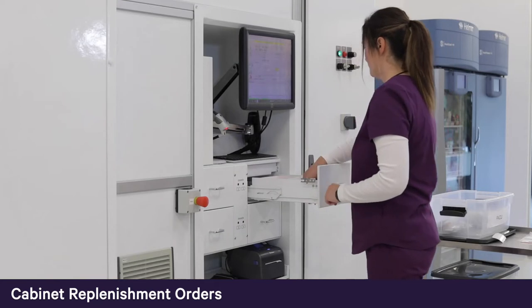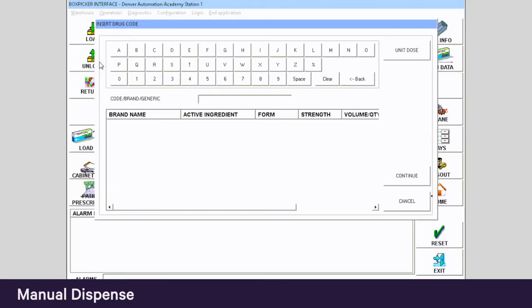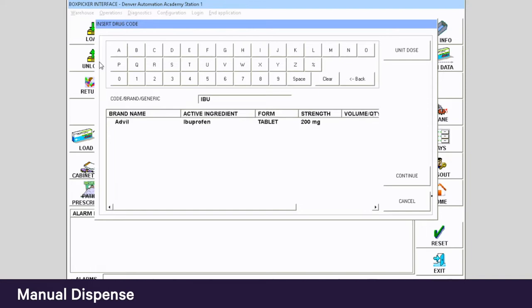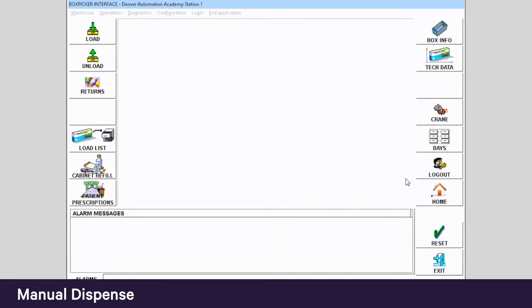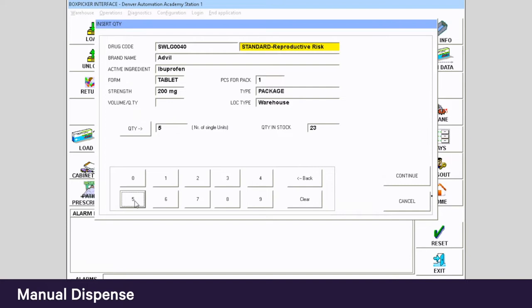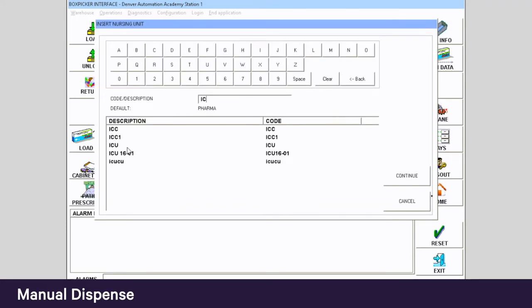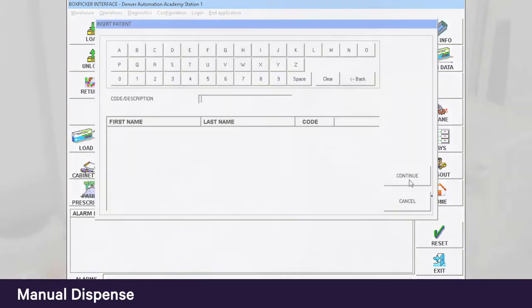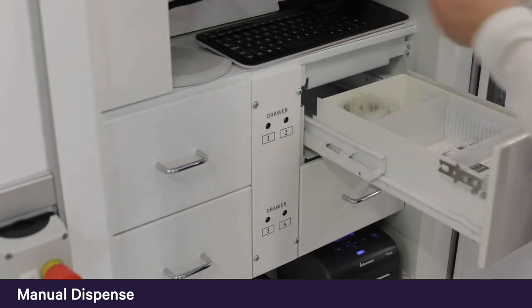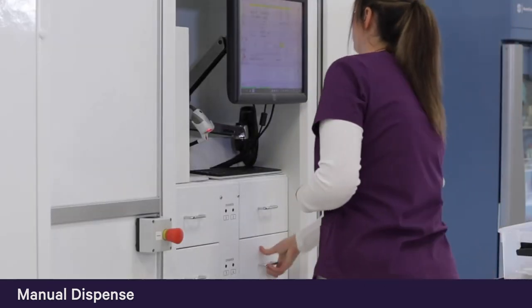BoxPicker also supports situations where a manual dispense is needed. The user simply selects unload, types the drug generic or brand name, identifies the quantity, and completes the dispense. As with all other dispense types, the details of all manual dispenses can be viewed within BoxPicker reports.